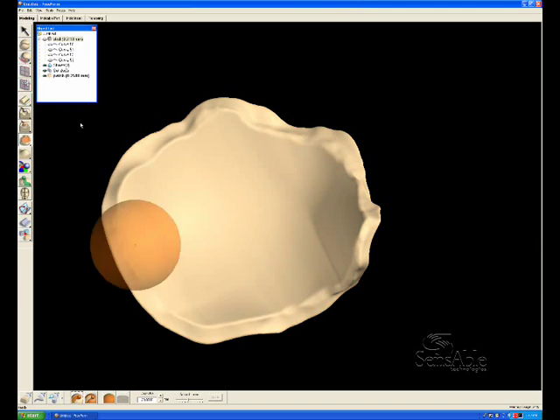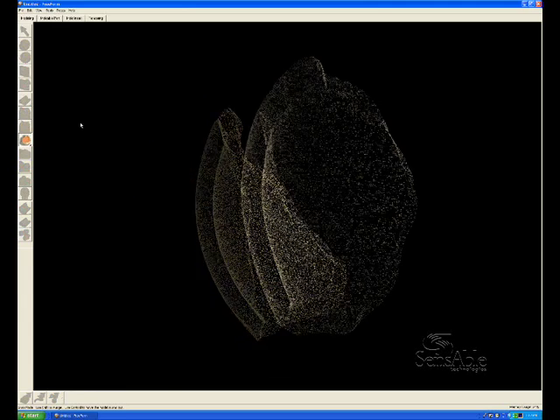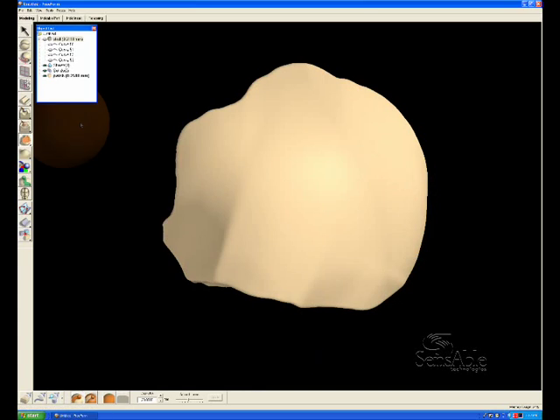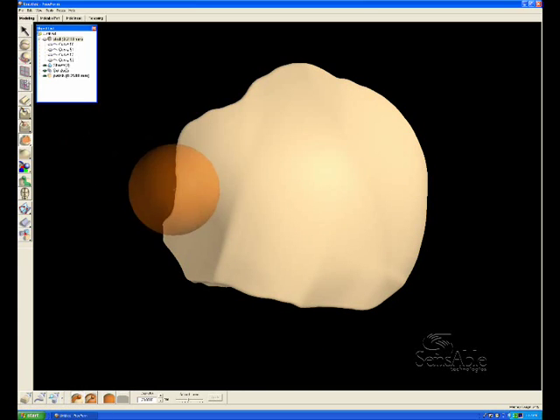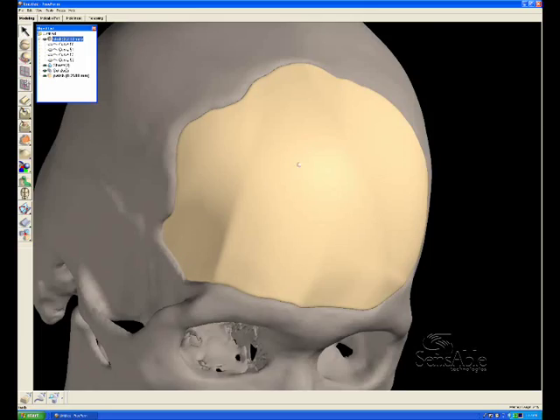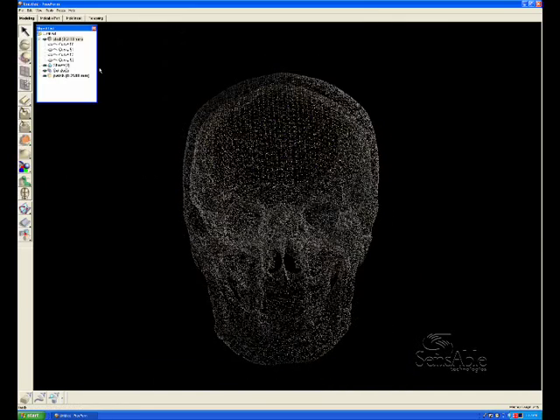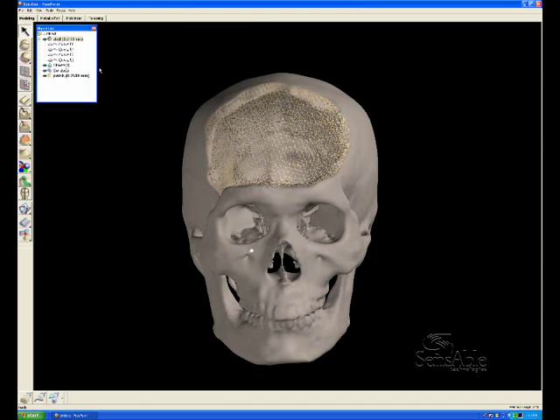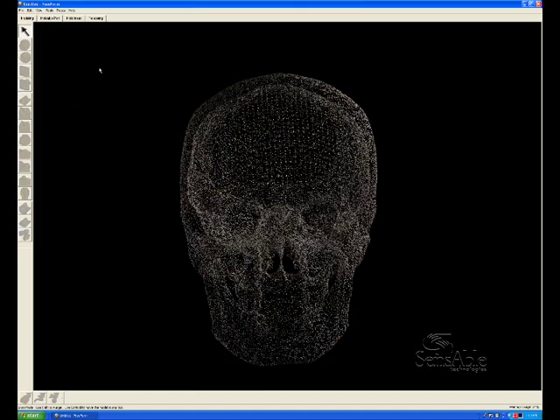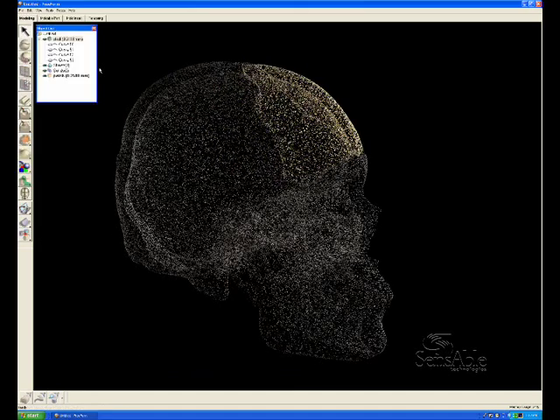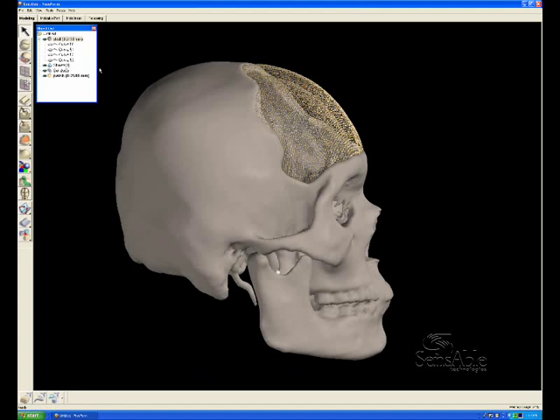At this point, we're pretty much finished. A chamfer edge could be added to the back side or it could be left simply as is. Because at this point we have a perfect fit with the scan data from the patient. And that concludes the skull patch implant demo using Freeform Modeling Plus version 8.2.